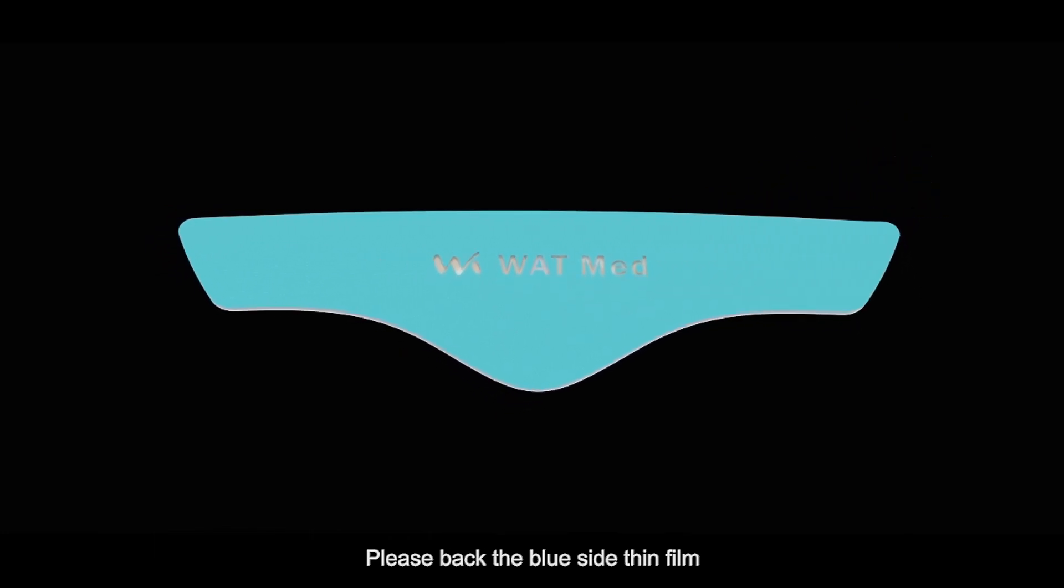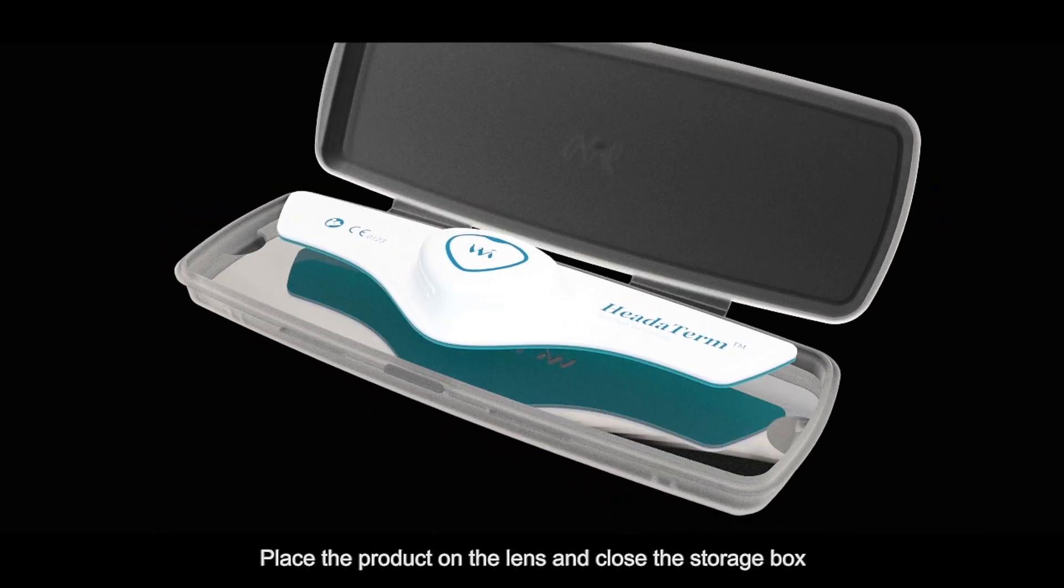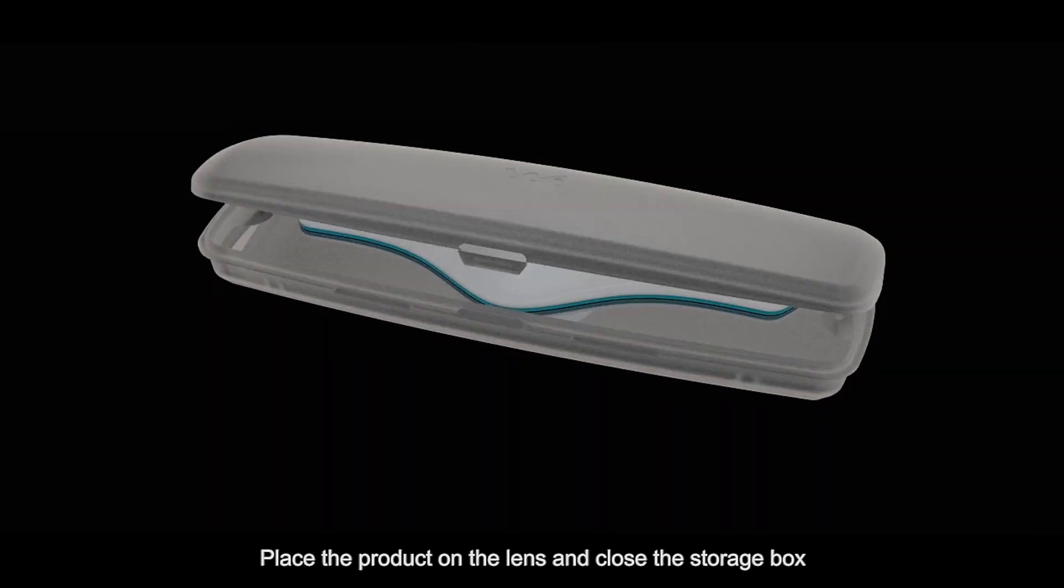Please put back the blue side thin film. Place the product on the lens and close the storage box.